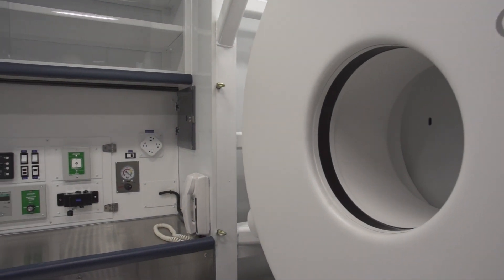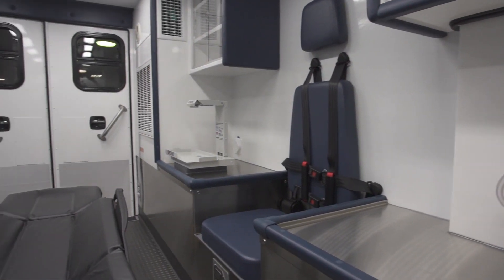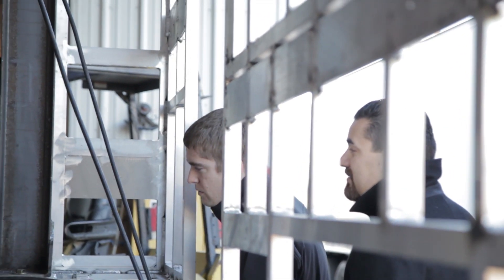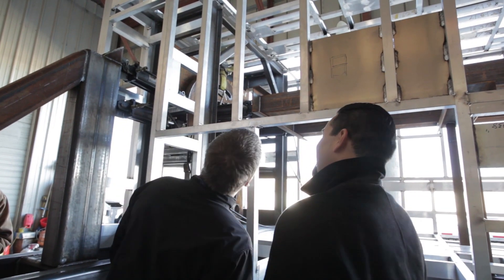This is a new frontier for everybody — putting a Neurologica CT scanner meant for a hospital in the back of a unit. When we first started figuring out how to restrain this nearly thousand-pound scanner in place during an accident, we looked at the standard, which requires it to hold up to an equivalent of 22.5 g-force in the front-to-back or longitudinal direction.